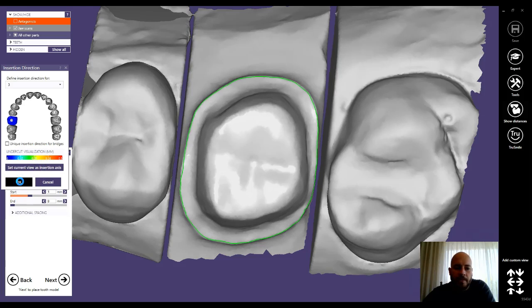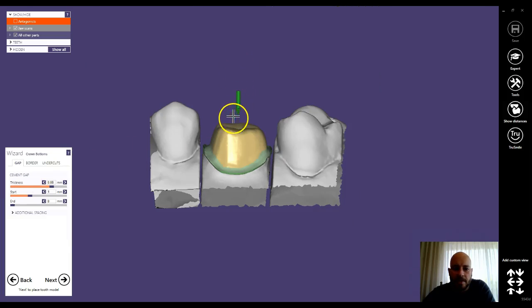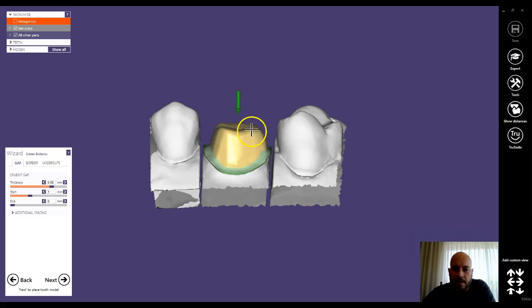And when it pops back up, you'll see a much straighter insertion which will give you a much cleaner contact on both the mesial and distal.